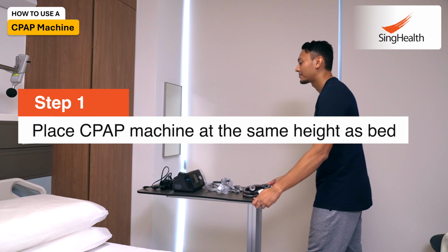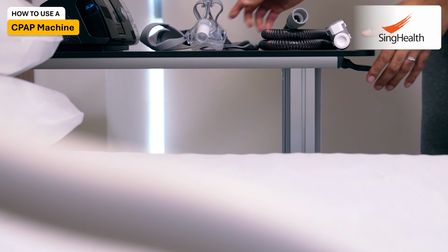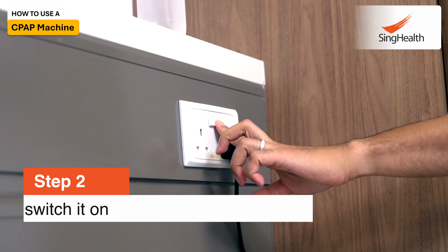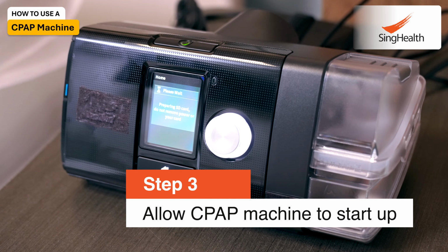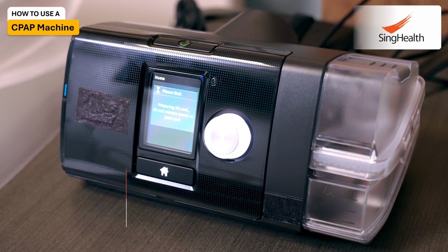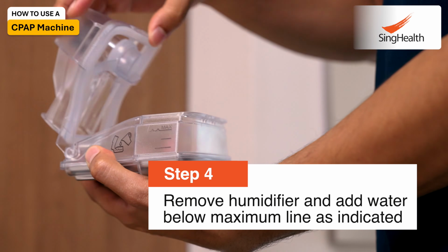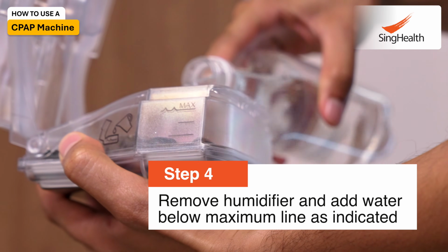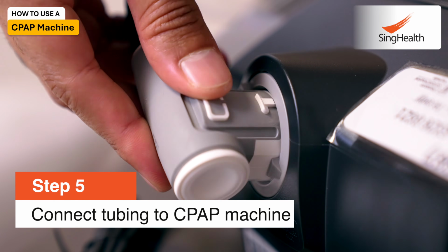Step 1. Place the CPAP machine at the same height as your bed. Step 2. Check that there is a power socket nearby. Switch on the CPAP machine. Step 3. Allow the CPAP machine to start up. Step 4. If your humidifier function is switched on, remove the humidifier and add water until it is below the maximum line as indicated. Step 5. Connect the tubing to the CPAP machine.